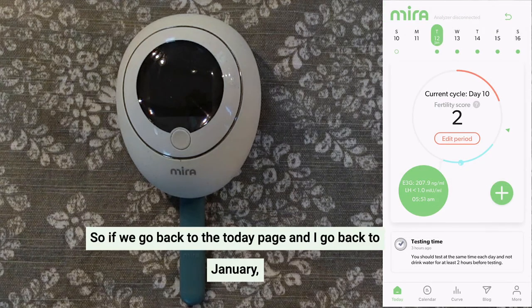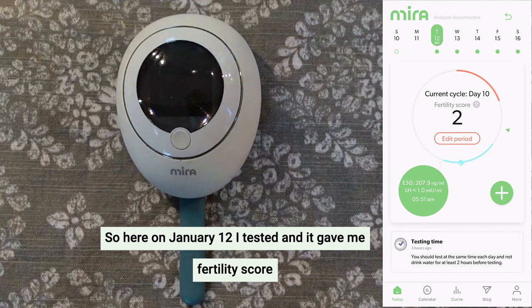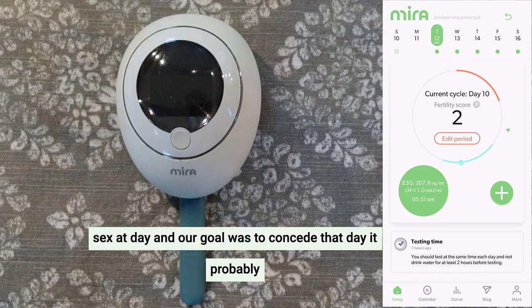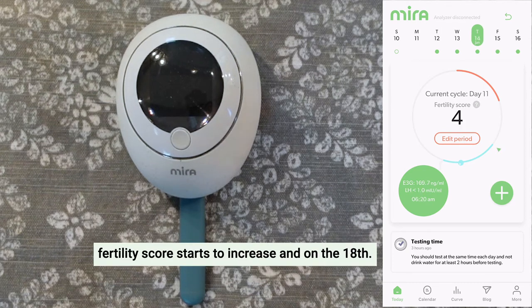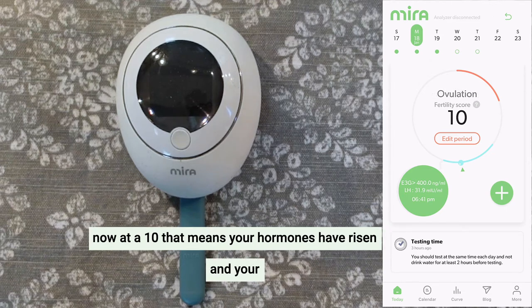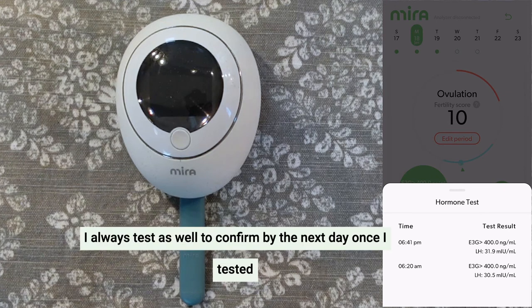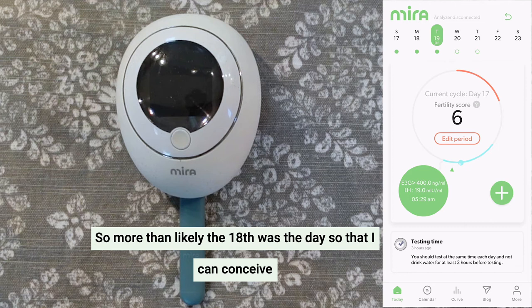Going back to the today page and looking at January — I started to test when they recommended. On January 12th I tested and it gave me a fertility score of only two. As you keep going throughout the days, the fertility score starts to increase. And on the 18th, I had a 10. When Mira sees that your fertility score is at a 10, meaning your hormones have risen and your LH has spiked, it's going to guide you to test twice. Usually on that day I test in the morning and then around 6pm in the evening to confirm. By the next day after testing, my LH had dropped and my fertility score dropped to a 6, confirming that the 18th was the best day to conceive.